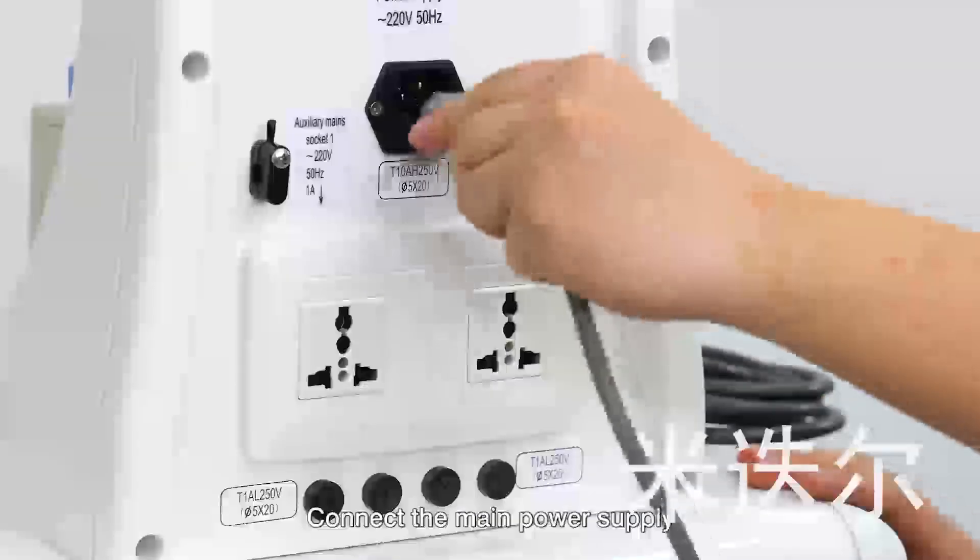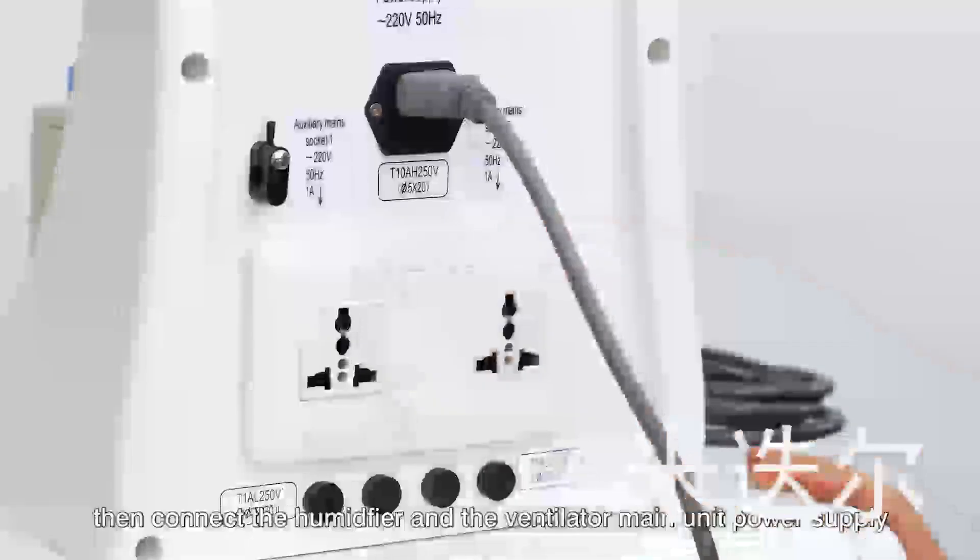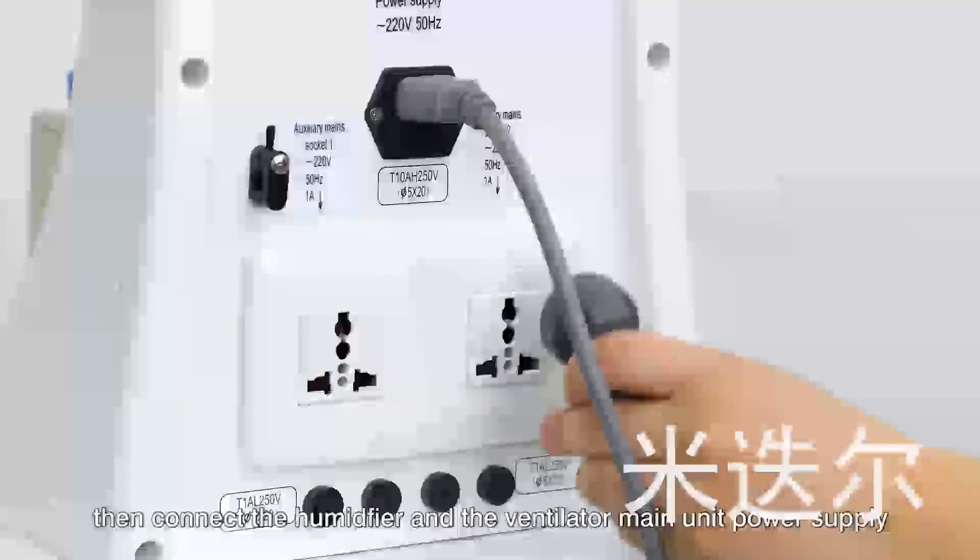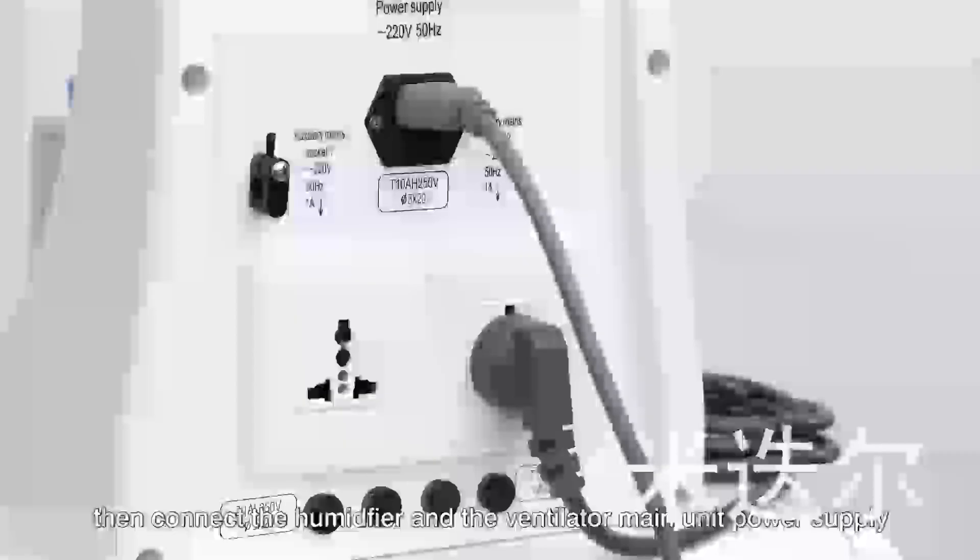Connect the main power supply, then connect the humidifier and the ventilator main unit power supply.